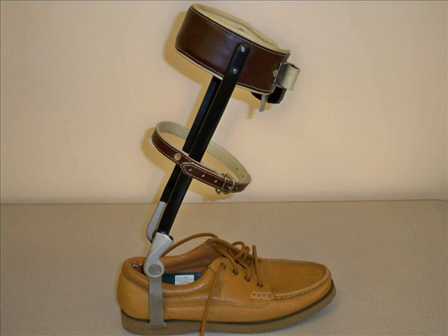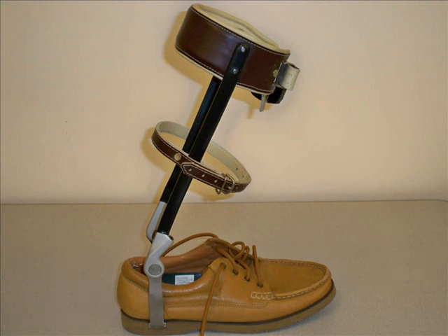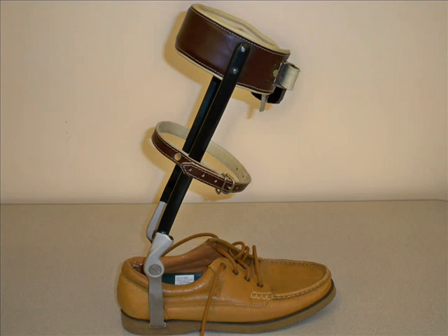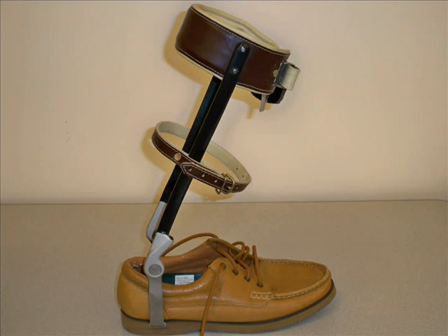This is a traditional AFO. It has a split stirrup, metal uprights, and leather cuffs to hold the uprights in place. It has a dorsiflexion assist and plantar flexion stop. There is no foot control beyond what is provided by the shoe.